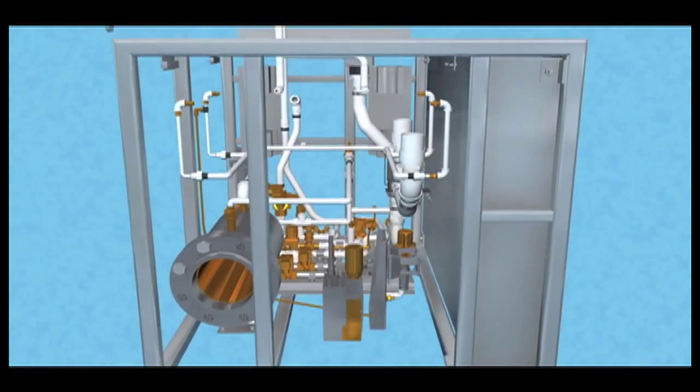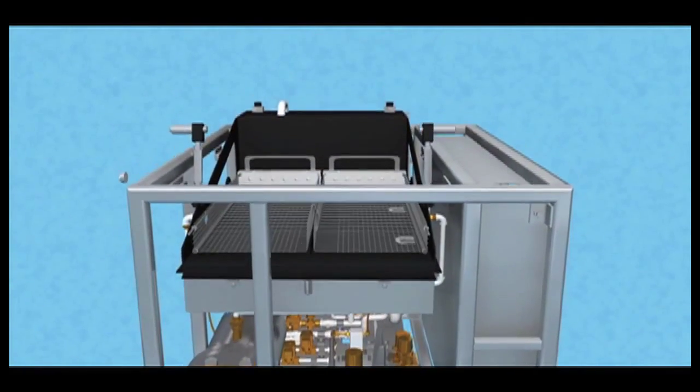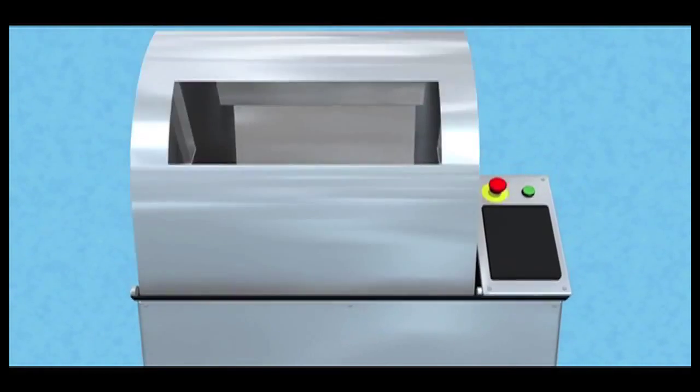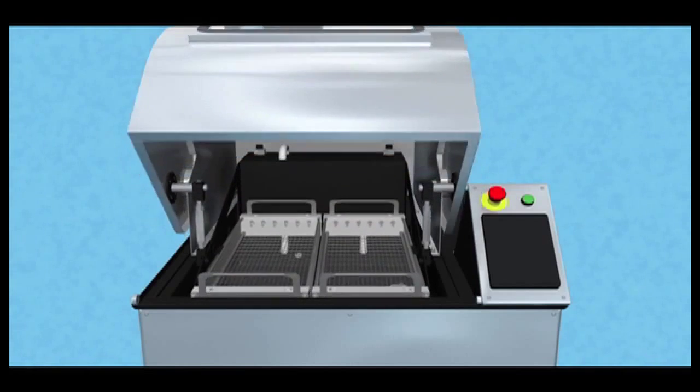Cannulated surgical instruments are becoming increasingly more difficult to clean. Midbrook Medical has designed the latest in automated cleaning systems, the Tempest Washer.